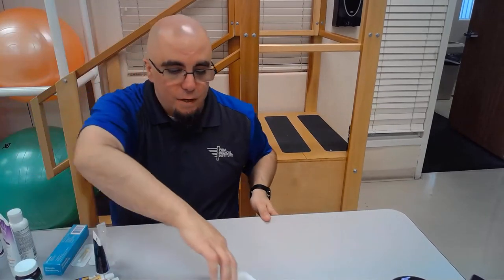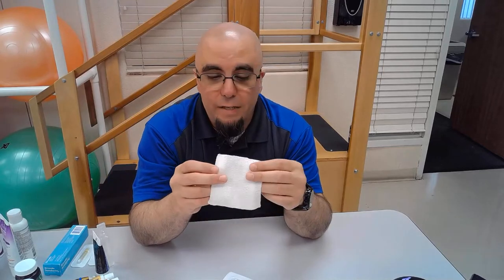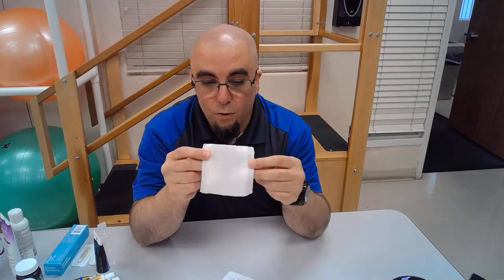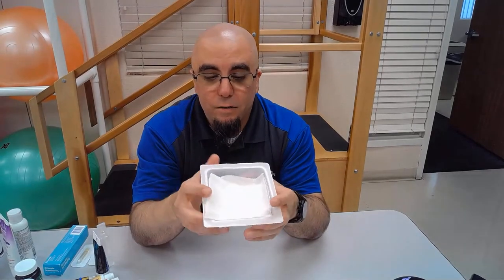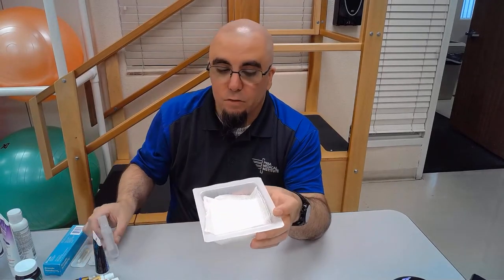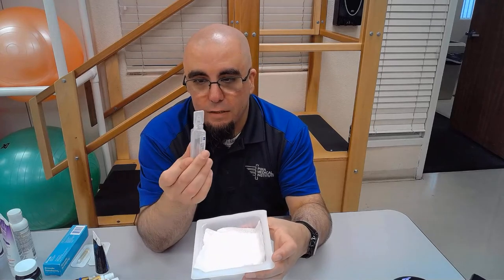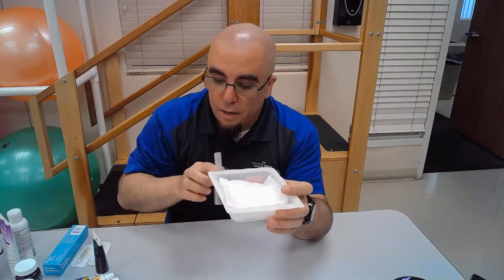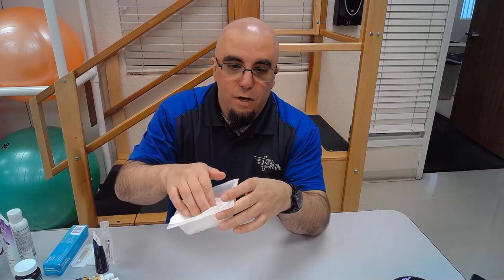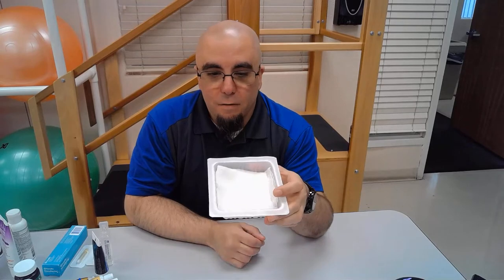Our most common primary dressing is standard gauze. Gauze is labeled by size — this is a four-by-four gauze pad. Most gauze comes in these nice containers, which makes it easy because when we need to dampen the gauze we can just add standard saline right in here, which keeps things from getting messy. This is your traditional type of gauze.